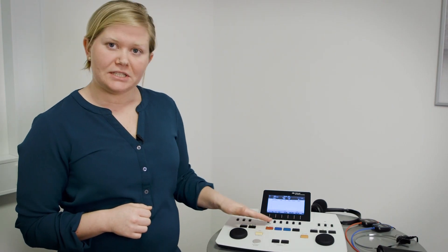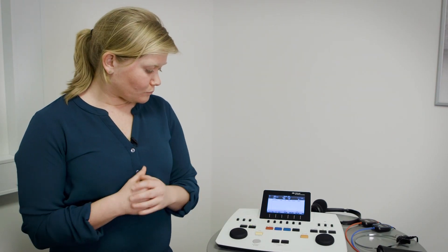Those are the function keys that we have on the device. In addition to that, there are a few functions that I want to point out that can be beneficial to use during speech audiometry to get you through easier.